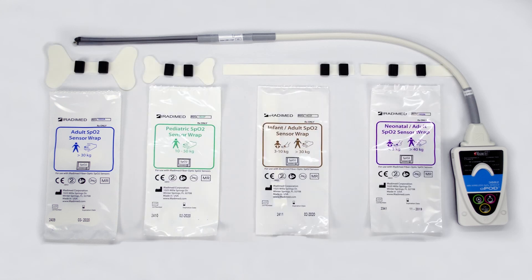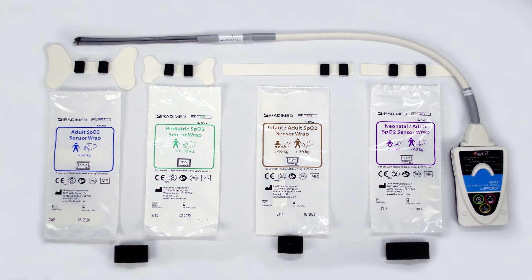The disposable grips are best used for patients that can move and cause reusable grips to become displaced or fall off. Additionally, they are best used for patients with contagious ailments.